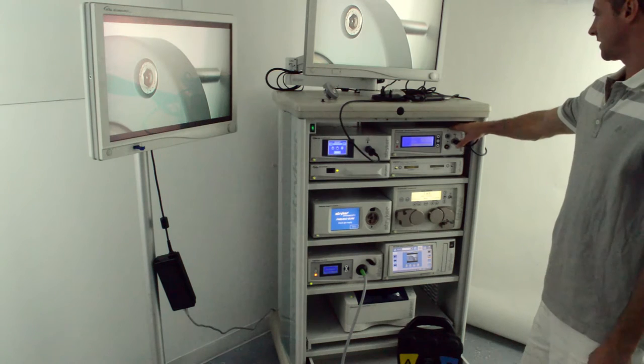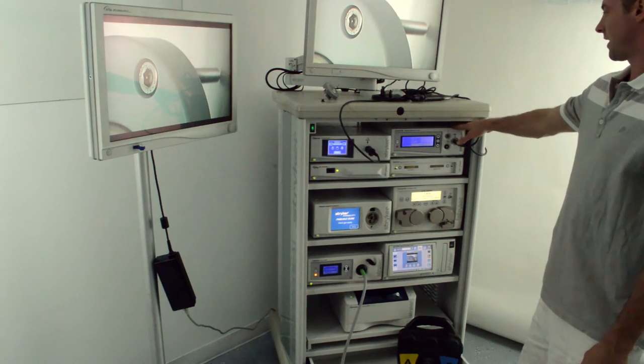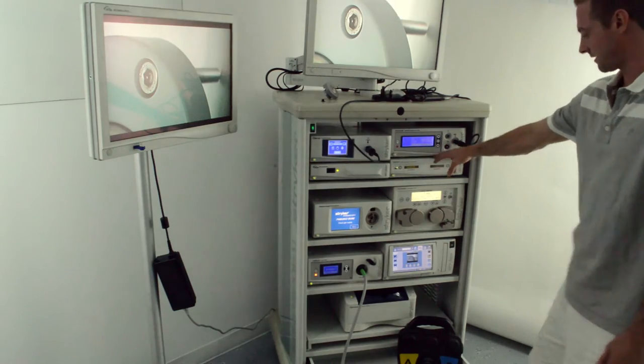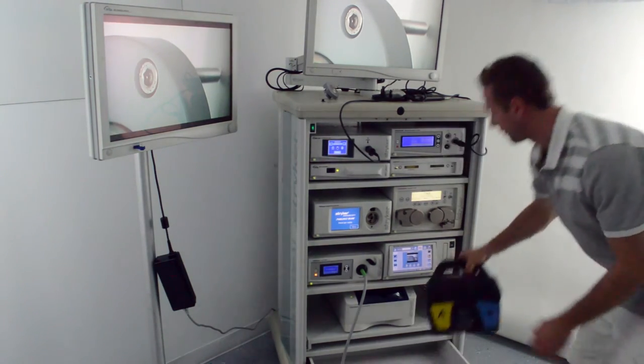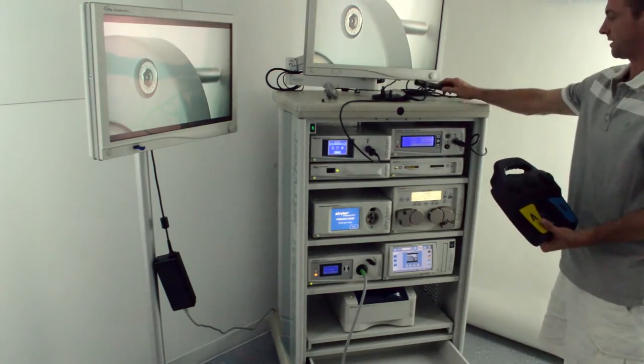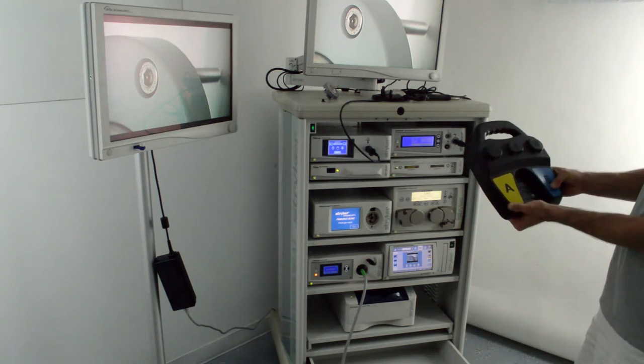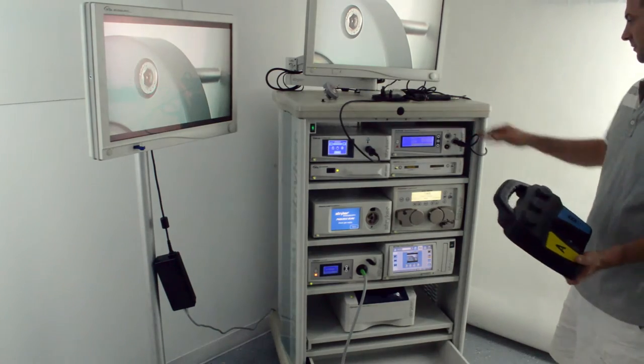The Crossfire is an arthroscopic RF unit for arthroscopy surgeries. The iSwitch links the foot pedal here together with the Formula handpiece. You connect the two with a FireWire cable.